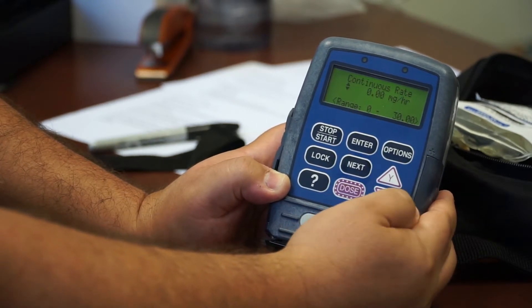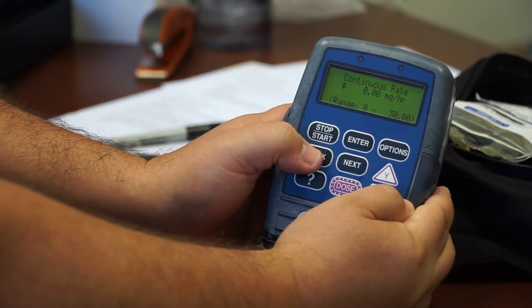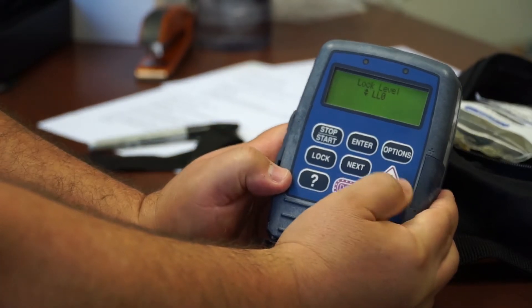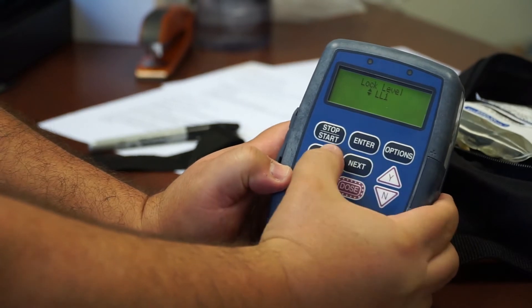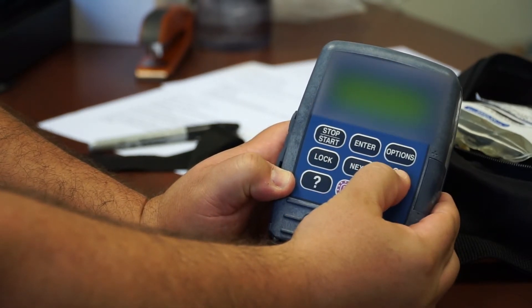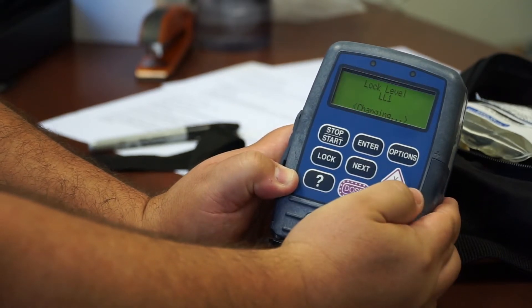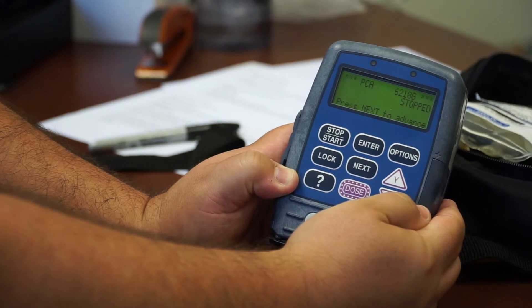Then after you make your medication order changes, you put it back in lock level one. So, it's changing to lock level one. And then we're done.